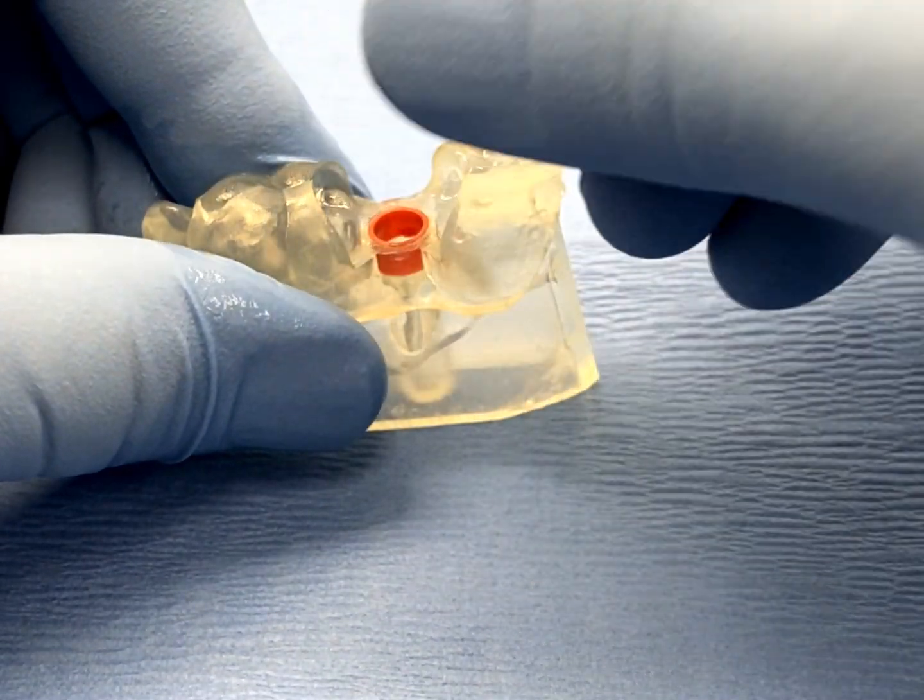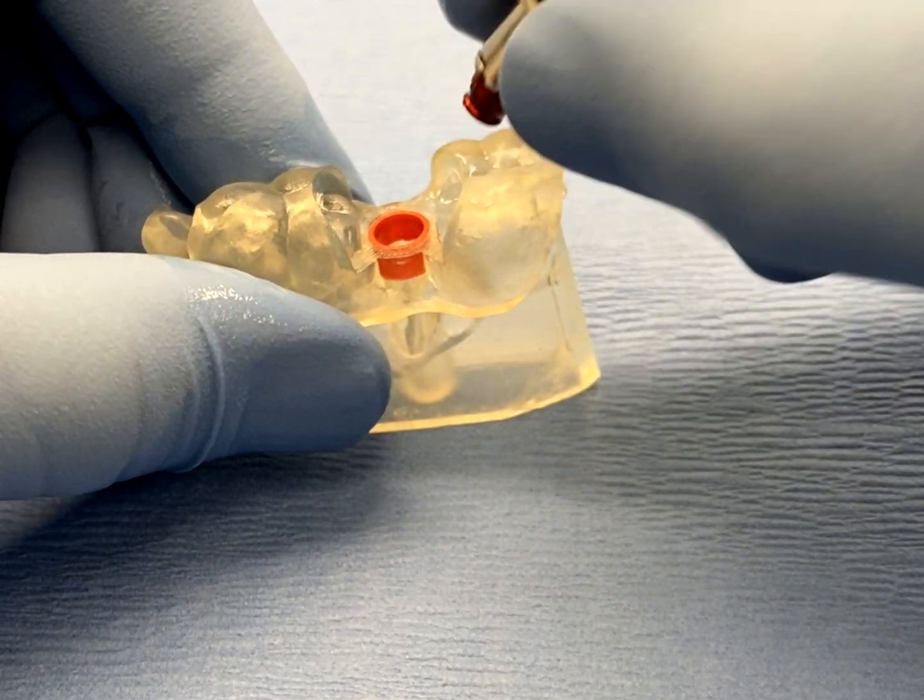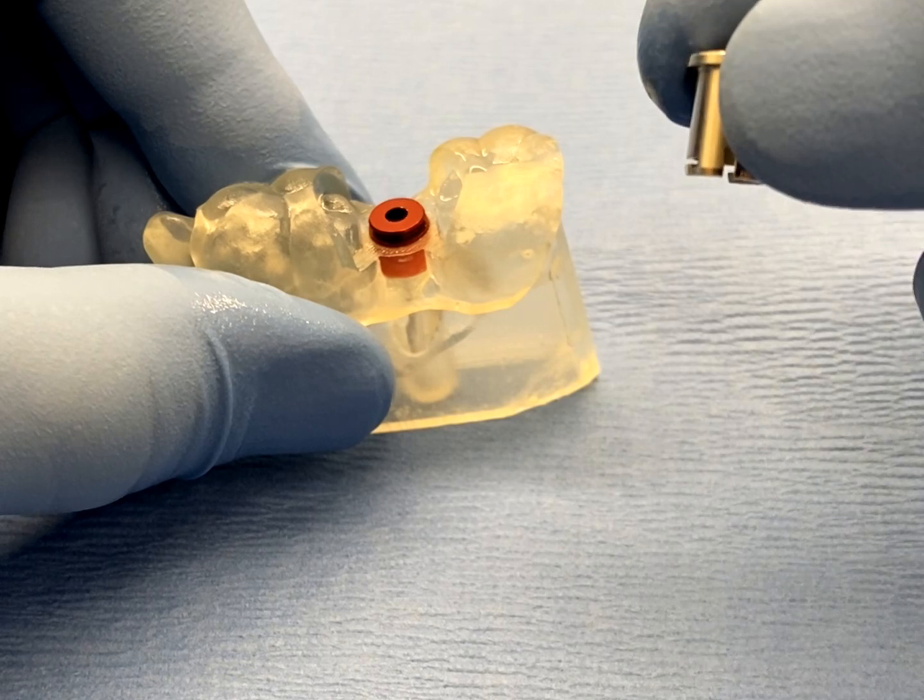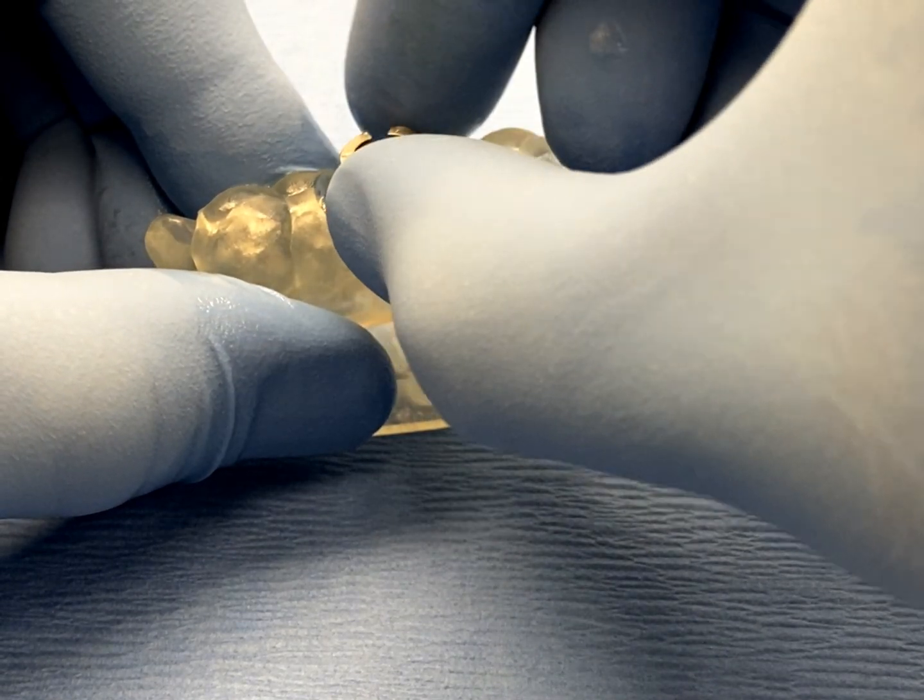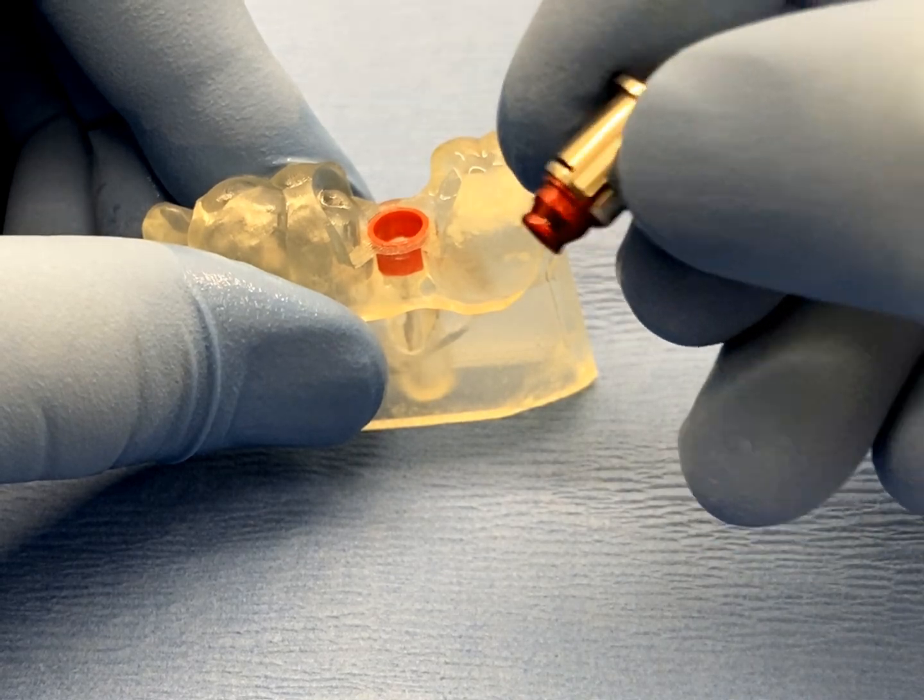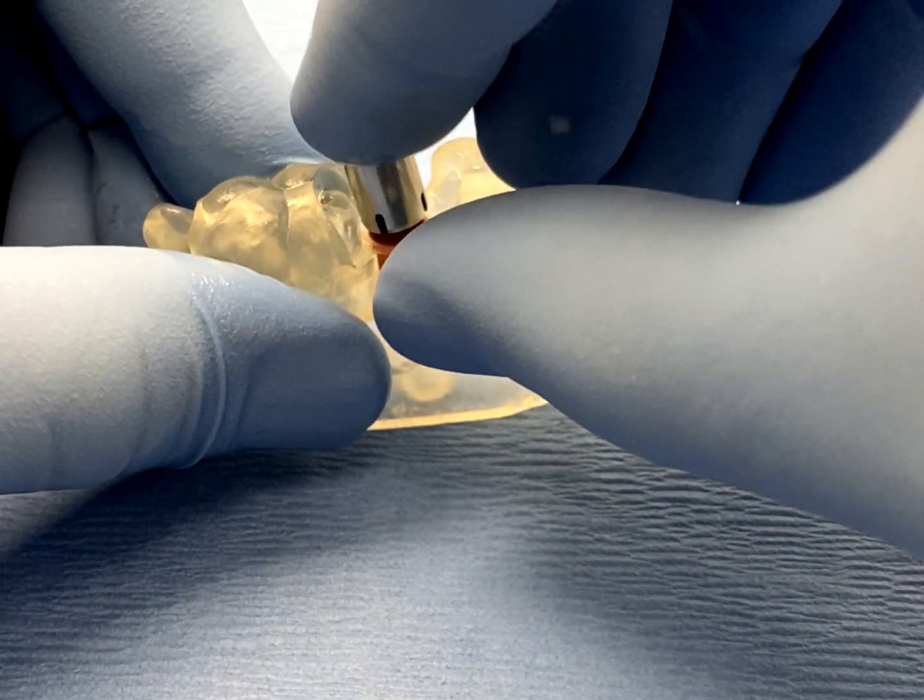It is important to reinsert and remove the surgical guide analog with the IR tool 2-3 times under these conditions in order to confirm the proper fit and retention of both the surgical sleeves and surgical guide in a clinical surgical setting.